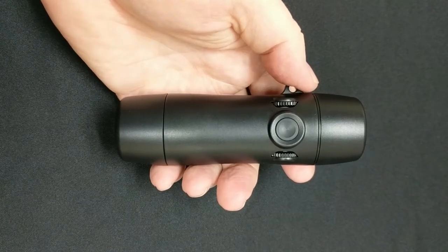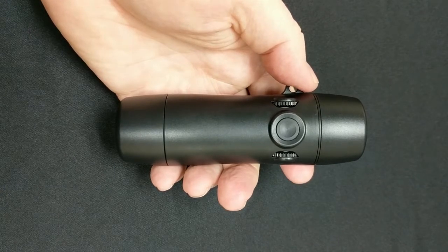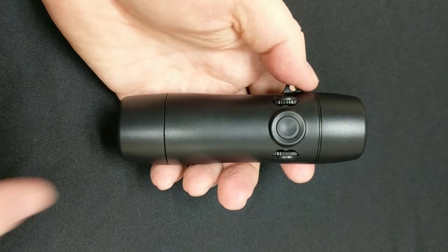Welcome to Griffin Laboratories. Quick tips to better speech with your True Tone Emote Electrolarynx. This is Cliff, and in this video I'm going to go over how to change the mode. It's easy to change the mode.